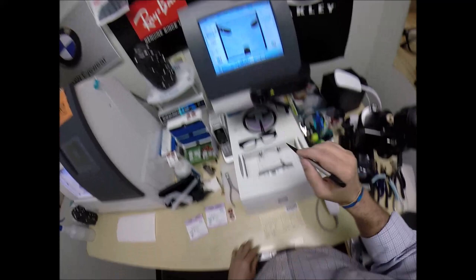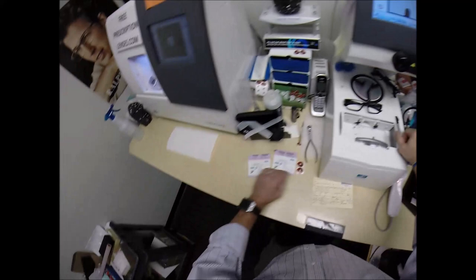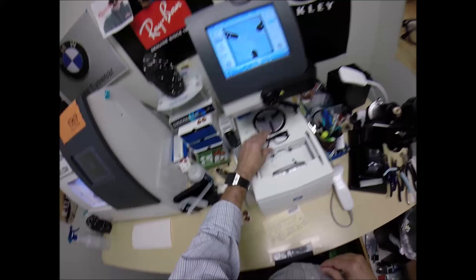I'm going to move on to the next screen. Your pupillary distance is 60 divided by 2 is 30, that's my final answer. So we're going to move the number to 30. Let's move the optical center up to 18. We're going to go 2 above. Let me grab my pen out of my pocket, that's trying to squirm away too. So we're going to go 2 above and we're going to cut it at 18.